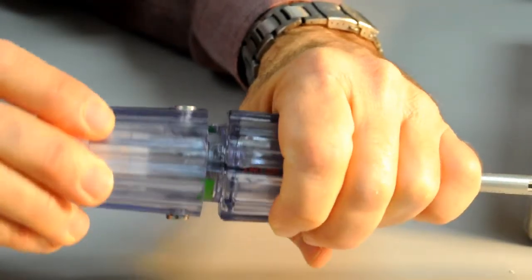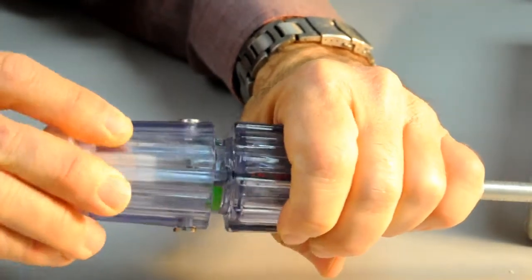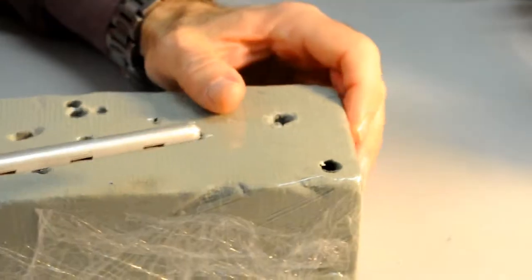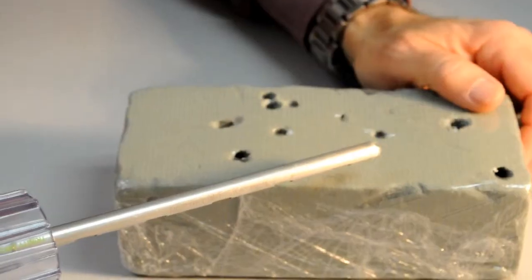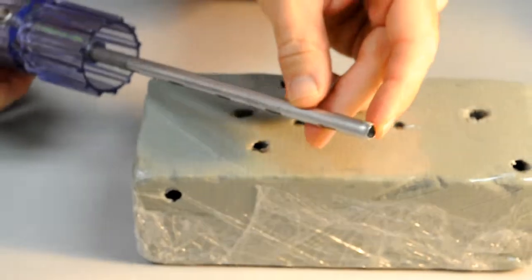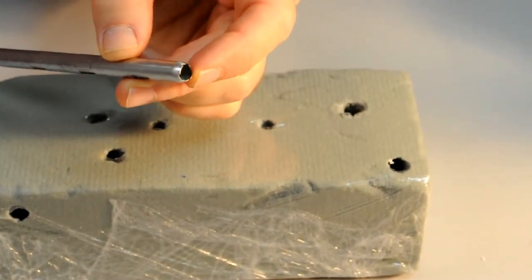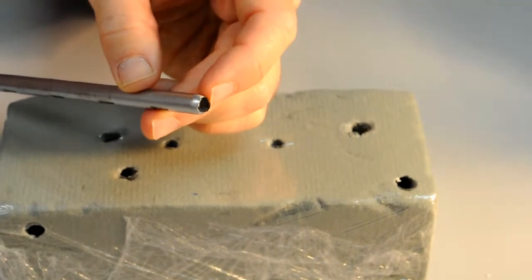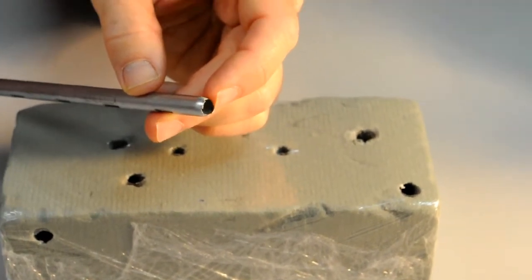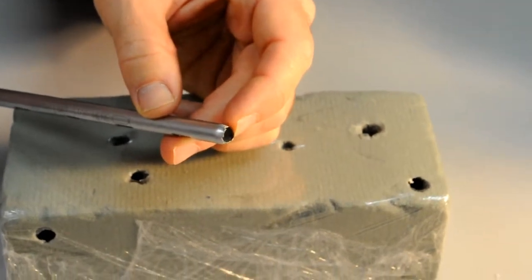In this position, the upper segment will control the entire device as long as there is forward pressure. We will use this piece of floral foam to demonstrate harvesting. The tip of the device has small castellated surfaces along the perimeter.